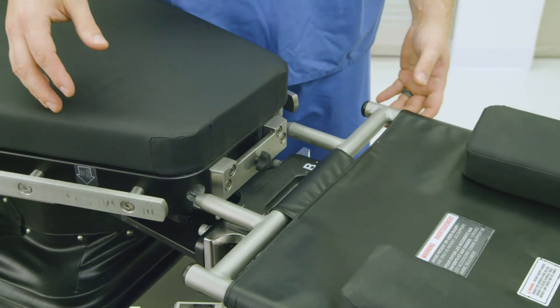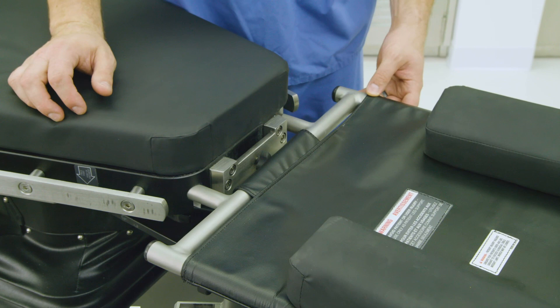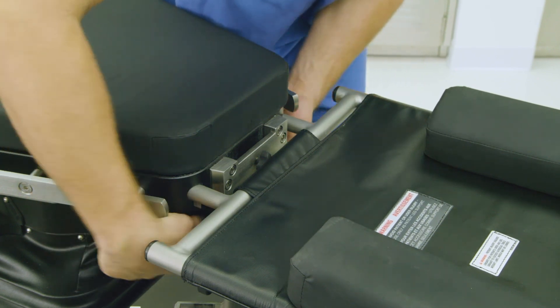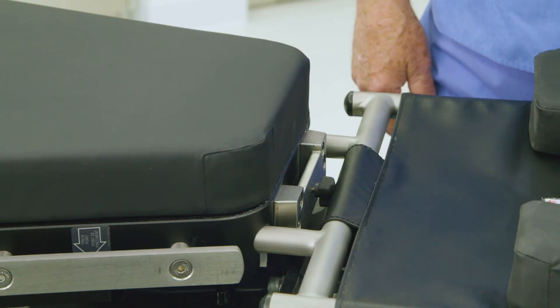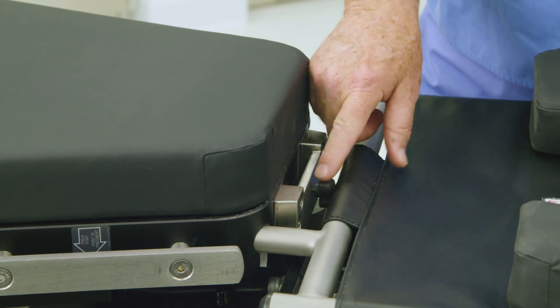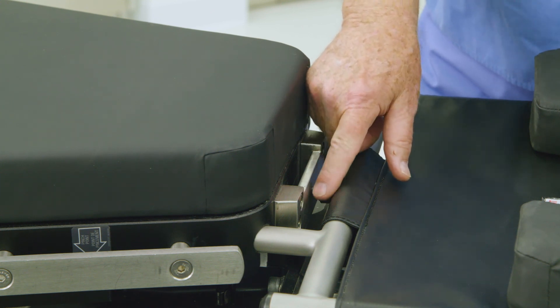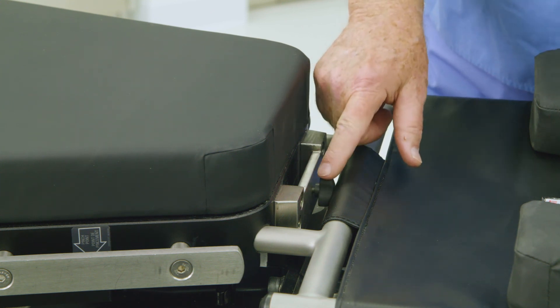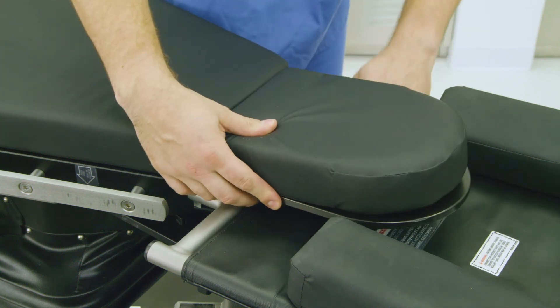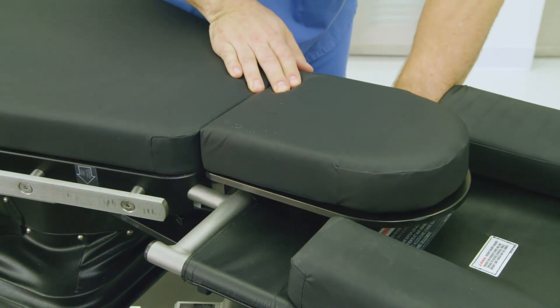Next, install the patient transfer board and secure its two thumb screws on the left and right side. Install the hip rest by aligning its mounting bracket with the corresponding slot on the OT-1000 series table as shown. Insert the hip rest, assure it is fully seated, and tighten the knob.